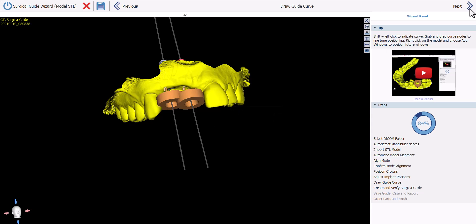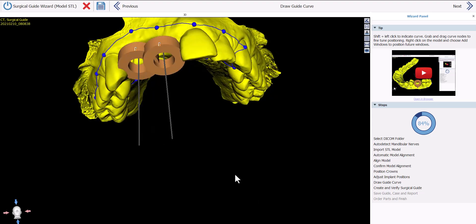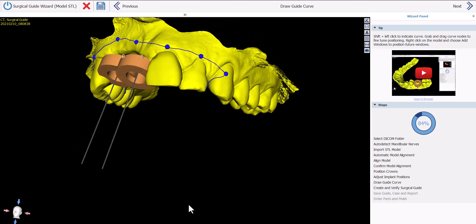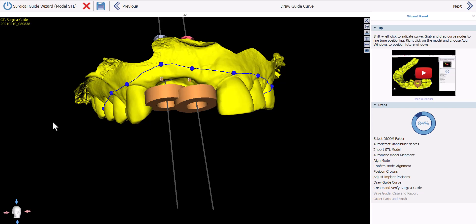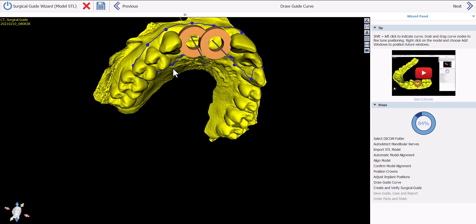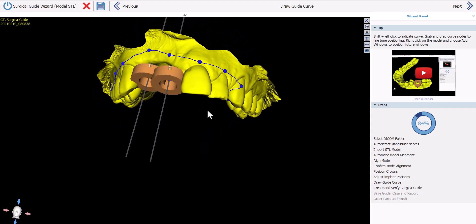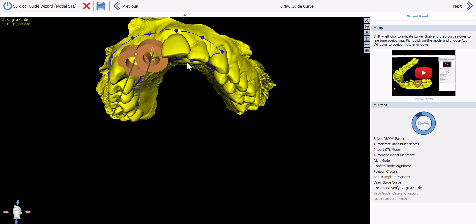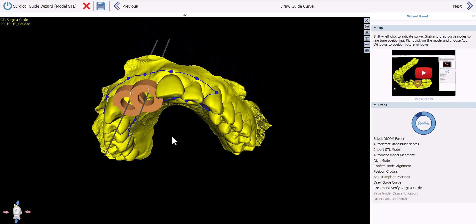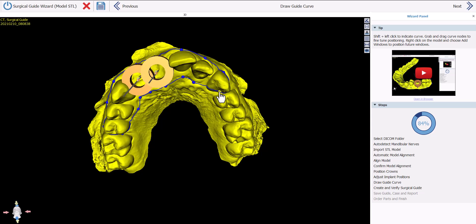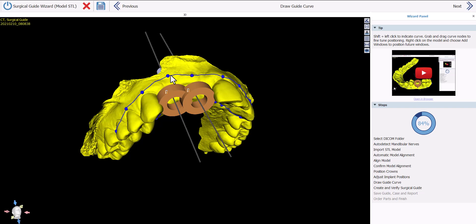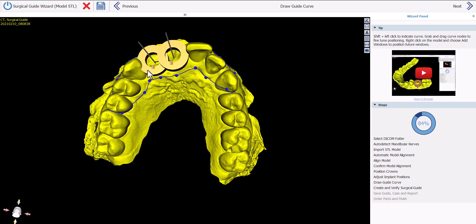The software will now automatically draw the surgical guide curve, which defines the area on which the surgical guide will be generated. In Preferences you can change the definition of the number of teeth on each side of the osteotomy. You can also grab and drag any node on screen to modify the surgical guide curve. Once confirmed, click Next.